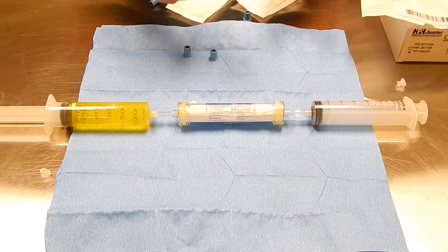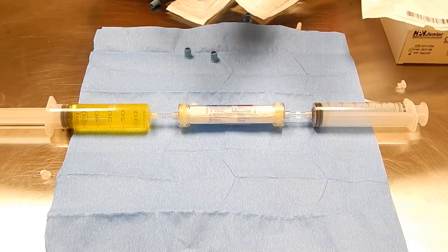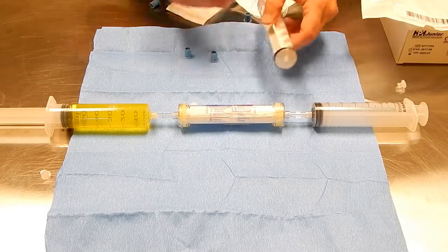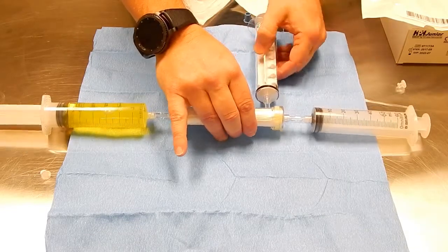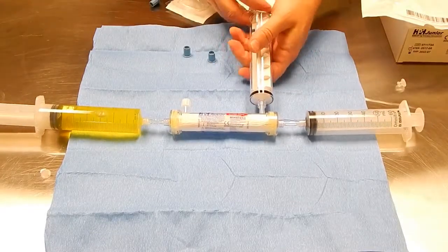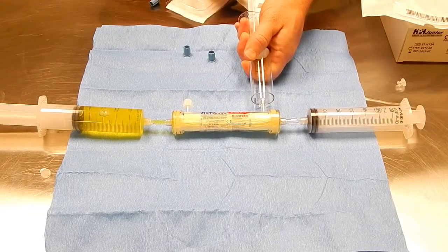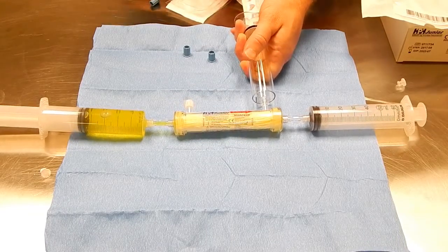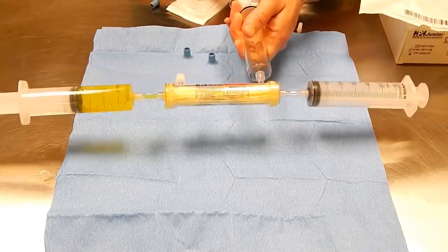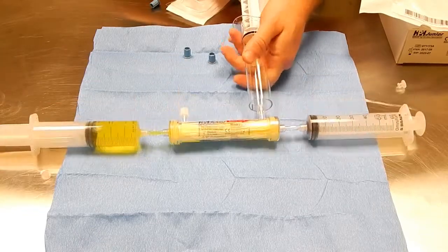Once that's in, I'm going to take our VacuLock syringe and get a pullback for a full 60 ml suction. Pull back this way and attach that. Pull back suction and lock it in. Locked into place.